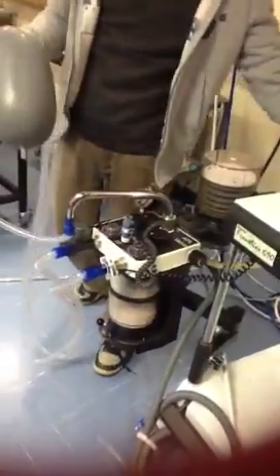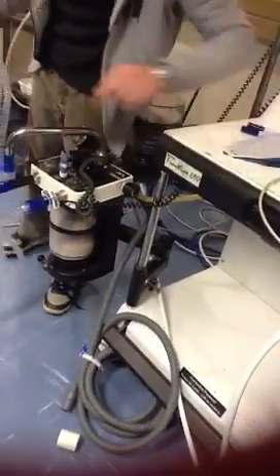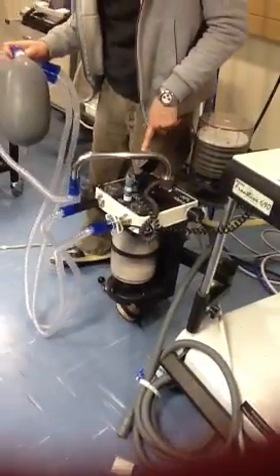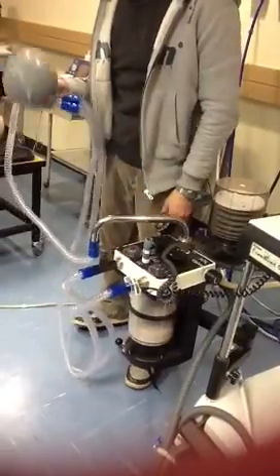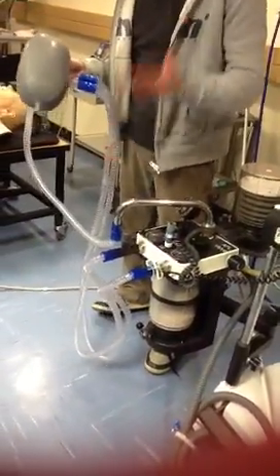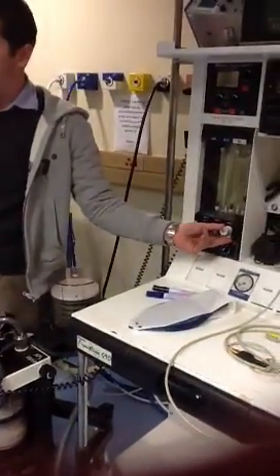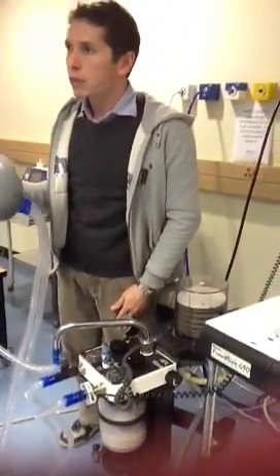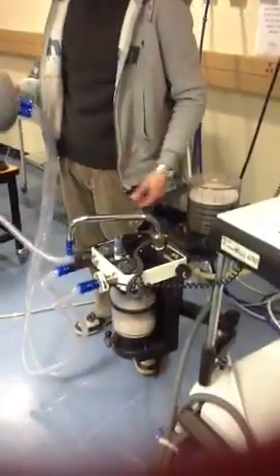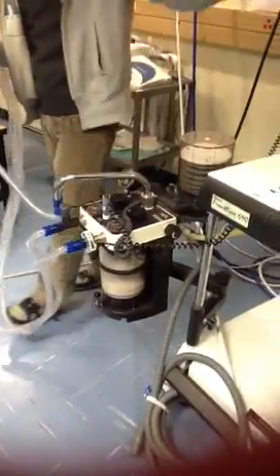Everything is closed now and all the flows are off. I use my oxygen flush to take my system to a pressure of 30 centimeters of water. If there's no leak, it should stay there all the time, because nothing is leaking. But if something's leaking, then the pressure is going to start dropping. So I try to compensate for that leak by opening my fresh gas flow, and at the flow where the pressure stays constant, I know that's the amount of gas that's leaking. I read that off my rotameter, and it's about 3-4 liters per minute.